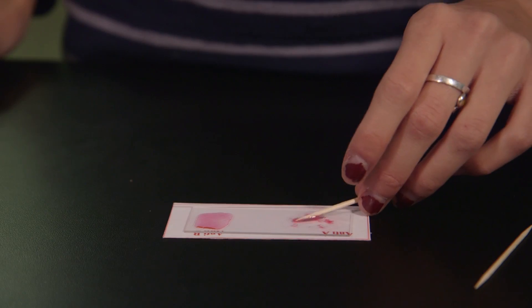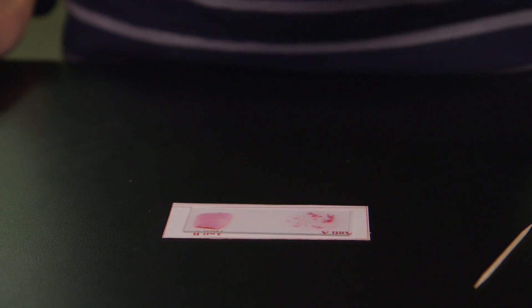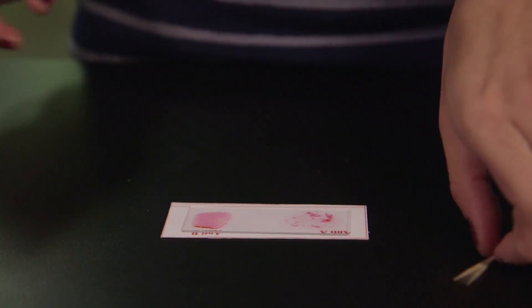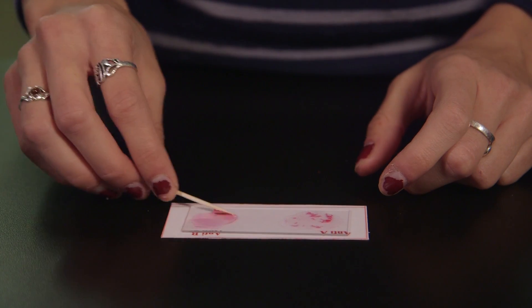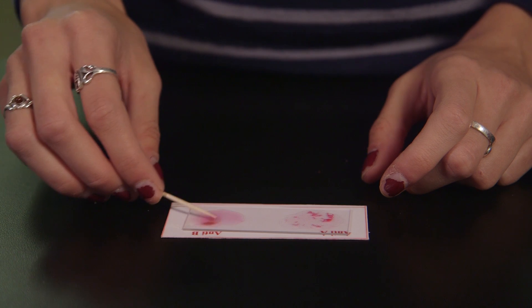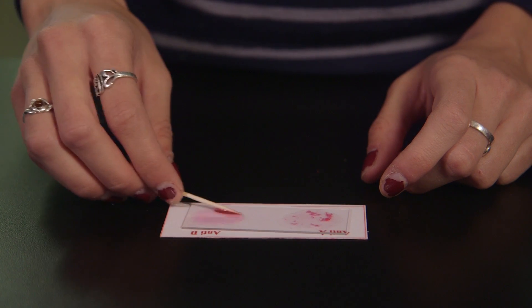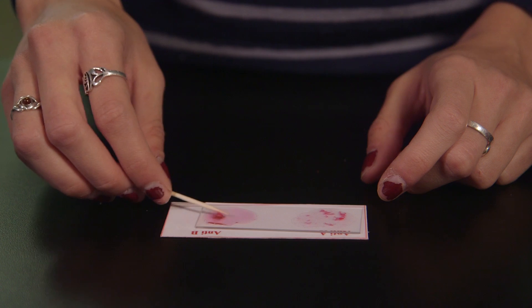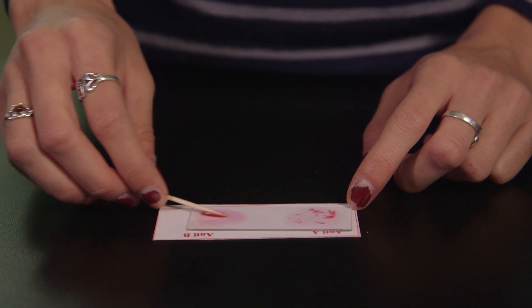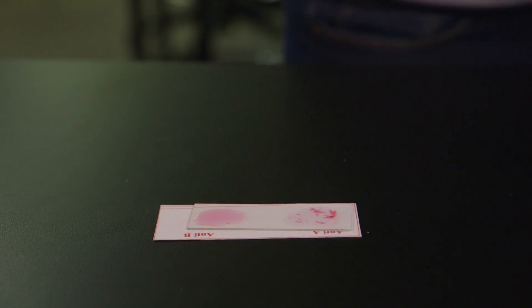Hold the toothpick in a flat position and thoroughly mix the blood and the anti-serum on each side of the card using a separate toothpick for each. Press the toothpick firmly against the slide as you spread the sample out in a circular motion. Continue stirring each mixture for about one minute. Place the used toothpicks immediately in the trash rather than on the table to keep the area clean.